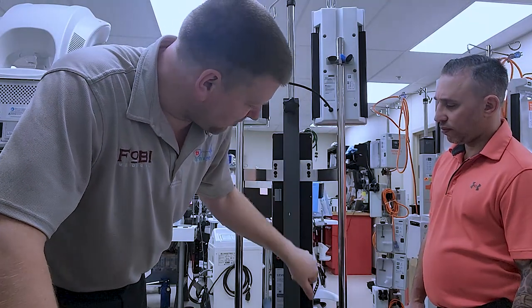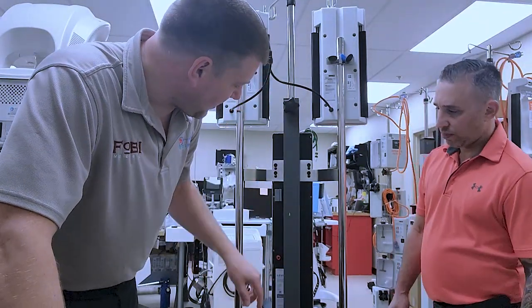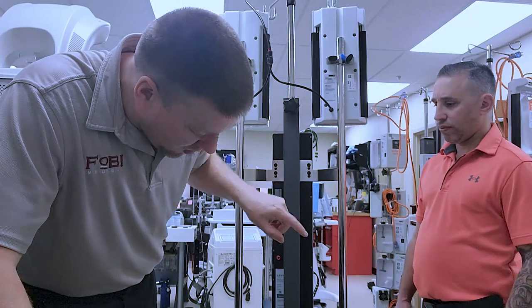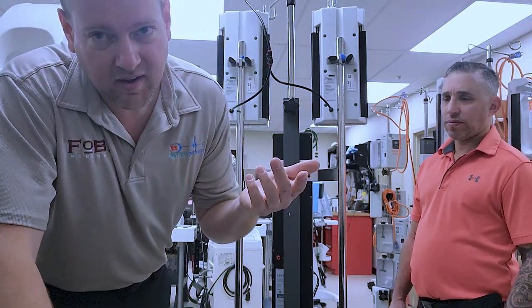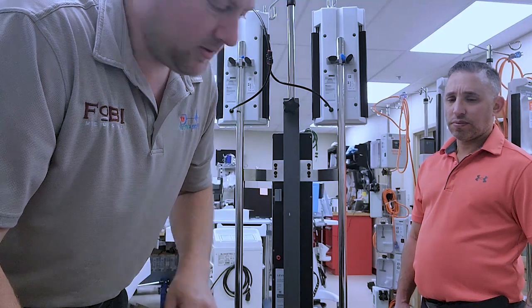And we're going to remove the number one Phillips around the perimeter. And there's going to be one, maybe two screws that are going to be trapped. We can't get to them until we lean it forward. So let's go ahead and do that.